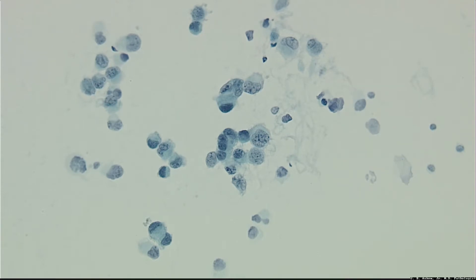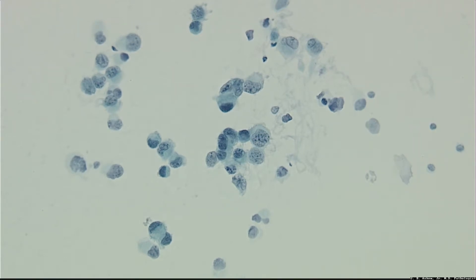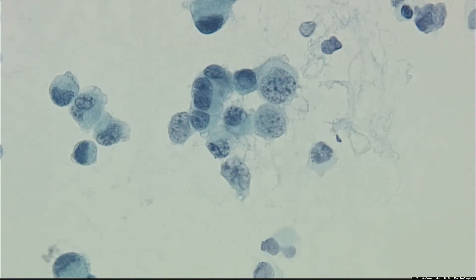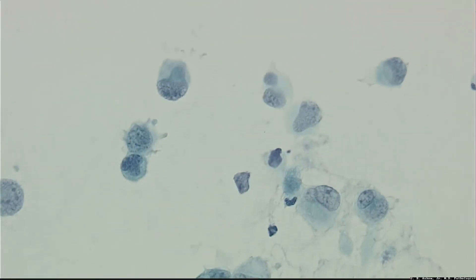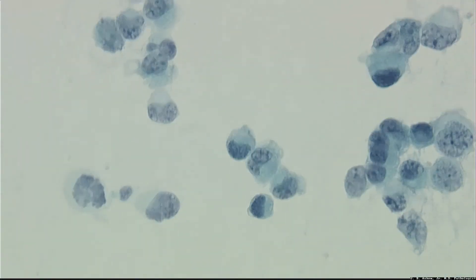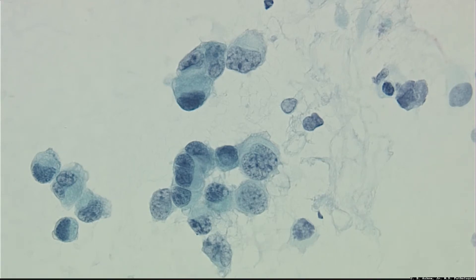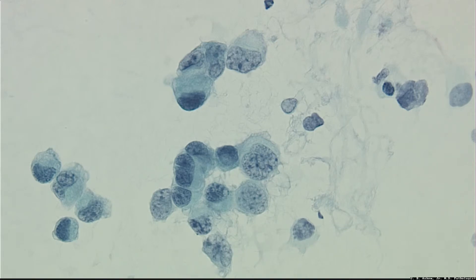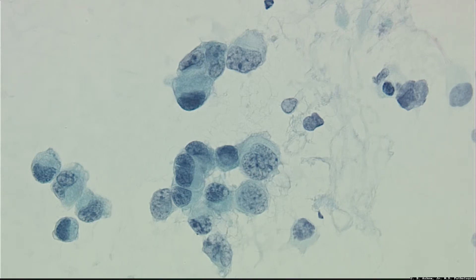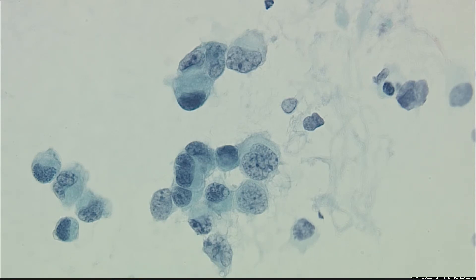Cytopathologists say they need the highest dry power possible, and other systems don't do that. Look at what happens at 40x — exquisite cytopathology that is hard to believe until you see it on your own large screen monitor. One aspect of the RTIS is large screen monitors; in my office I have a 42-inch commercial grade HD monitor and the images are absolutely unbelievable. This is a great system and its versatility is unparalleled.